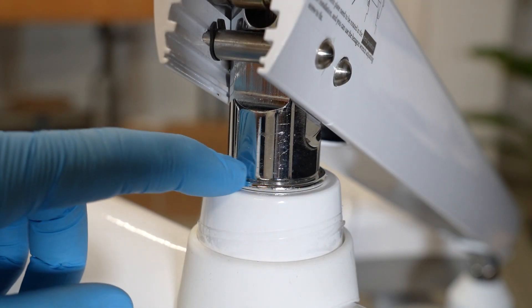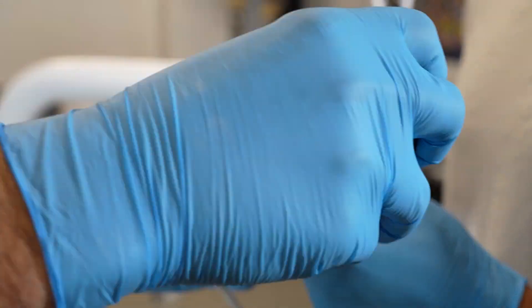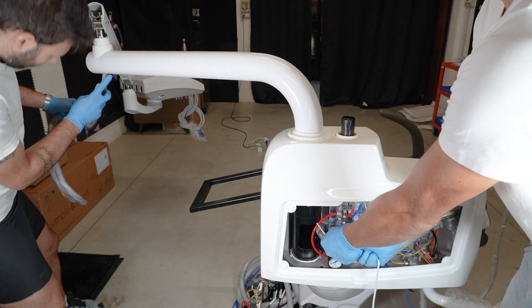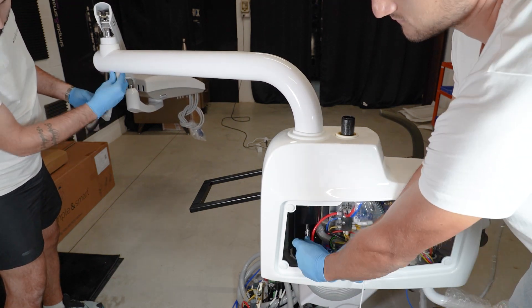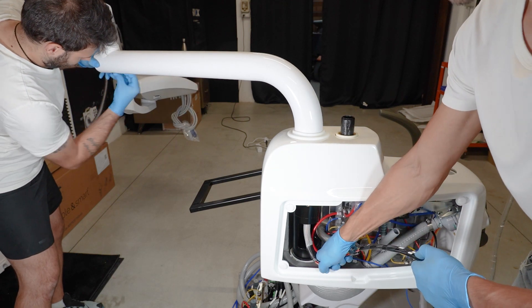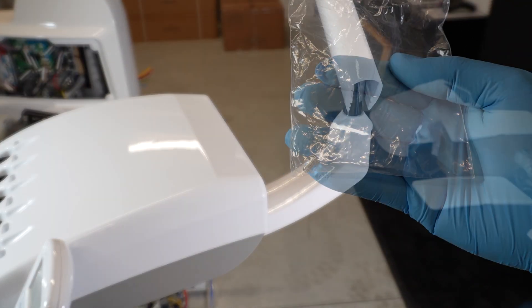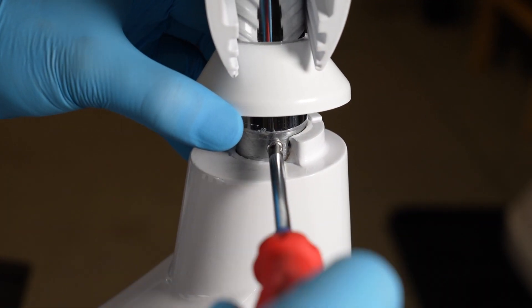Check the silver ring. Insert the tubes and the cable into the doctor tray arm up to the water unit. Place back the silicone under the tray arm. Put the set screw in the doctor tray arm.